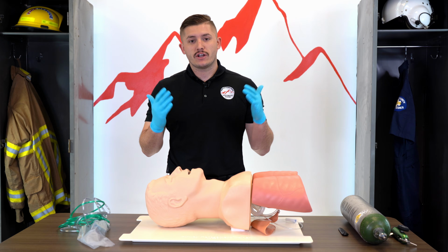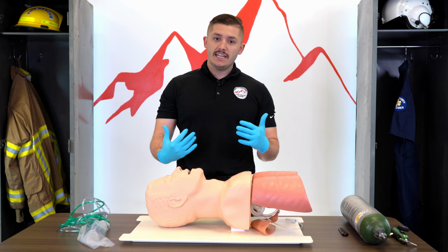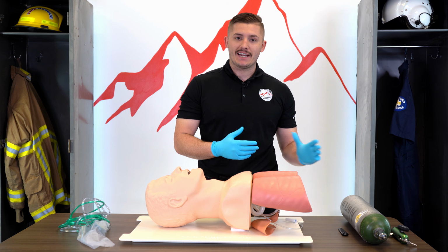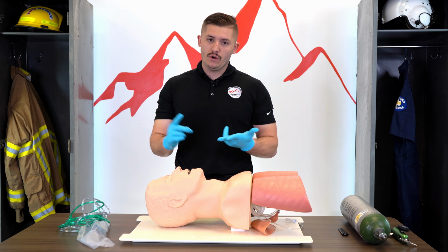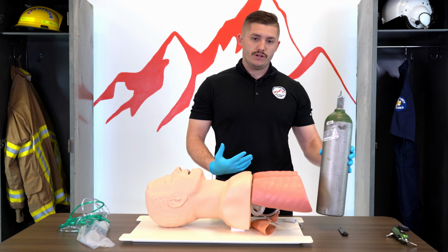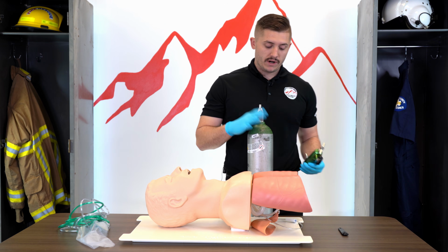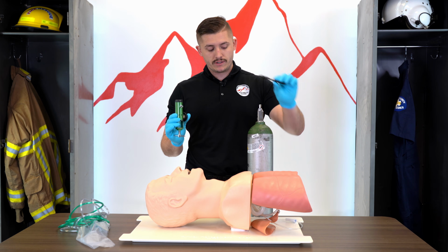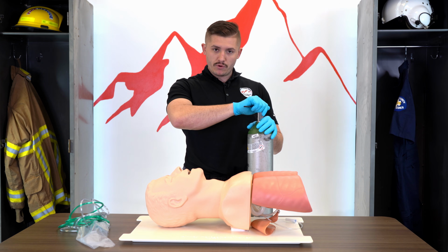For our patients that are conscious and talking to us and are alert and oriented that need oxygen, we're not going to place an airway adjunct in them and start bagging them, right? We're going to assist them by giving them a nasal cannula or a non-rebreather. To do so, we have to set up our oxygen or our oxygen tank. With this, we're going to have our tank, we're going to have our regulator, and we're going to have an oxygen wrench, okay? So when doing this, we like to crack our tank, make sure we actually have pressure in the tank.